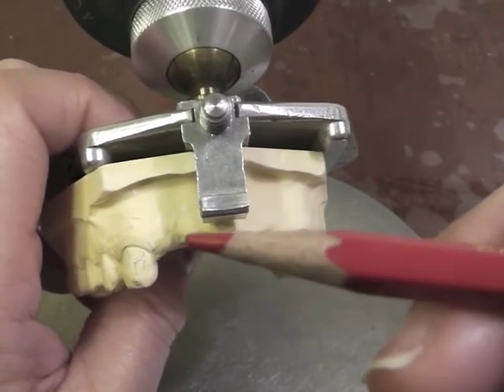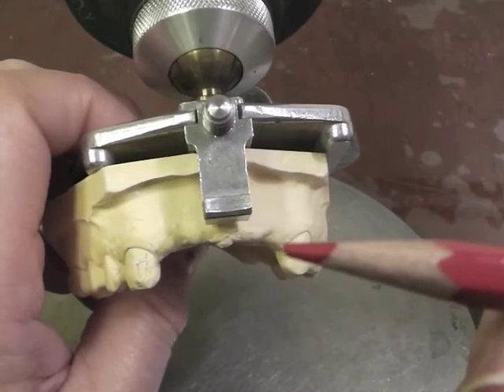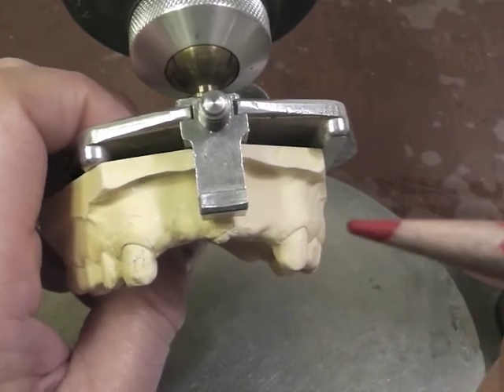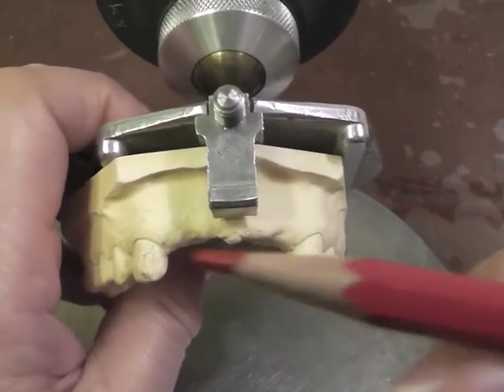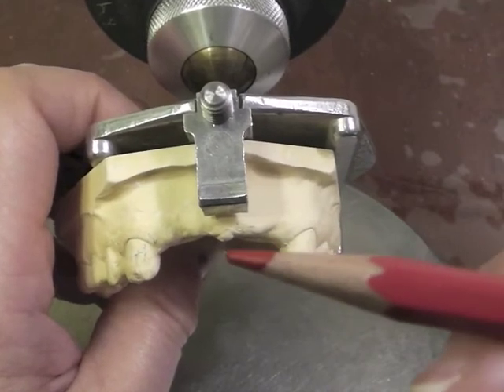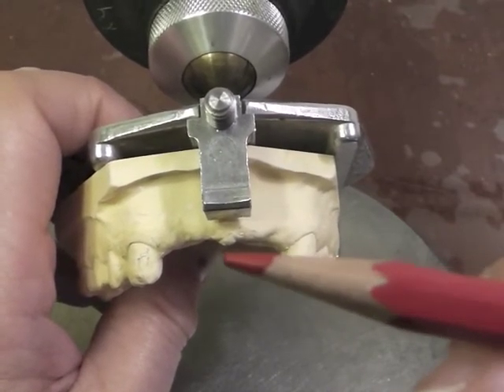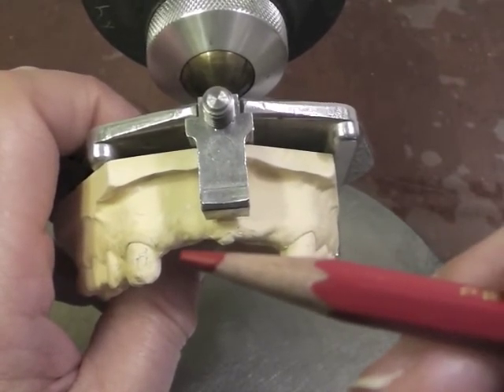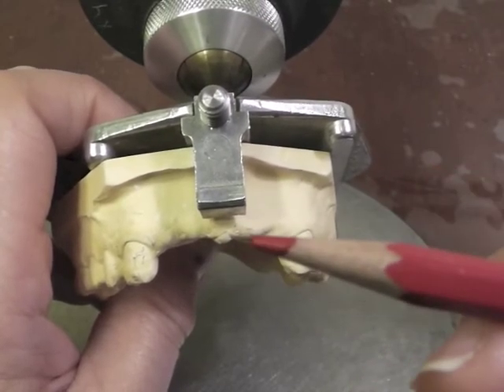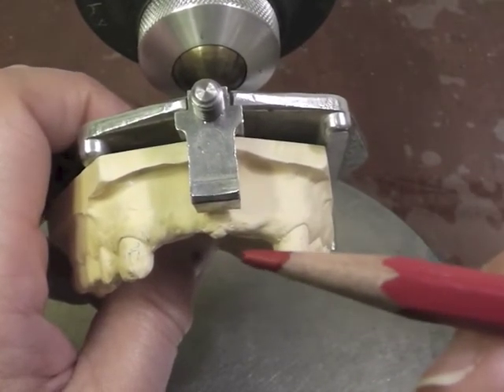If the patient had very long teeth, that would not be aesthetic for someone with a high smile line. So our tooth replacement options for the anterior in a Kennedy Class IV are the wrap, reinforced acrylic pontic, the facing, and base attachment.